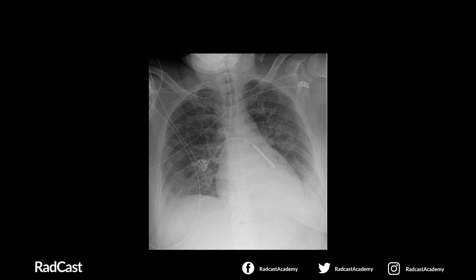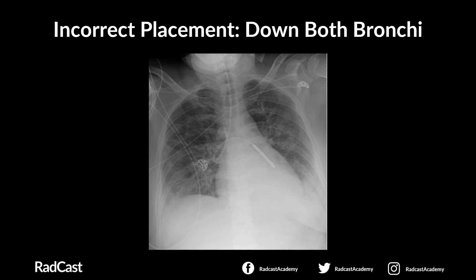For the second chest x-ray case, after confirming patient details and checking the viewing field: step one, does the NG tube descend in the midline following the path of the oesophagus? Yes, it is descending in the midline. Step two, does it clearly bisect the carina or bronchi? No. We can see it travelling down into the right main bronchus, then coiling back and going into the left main bronchus, with the tip ending in the left main bronchus. This is an incorrectly placed NG tube coiled in both bronchi.